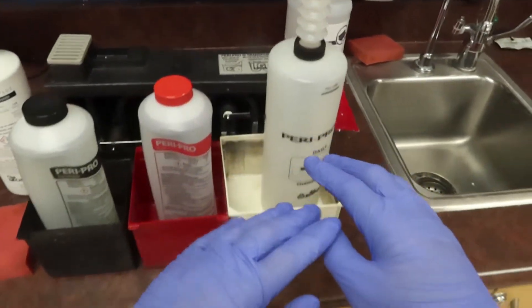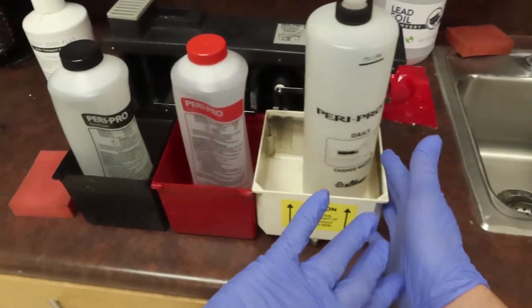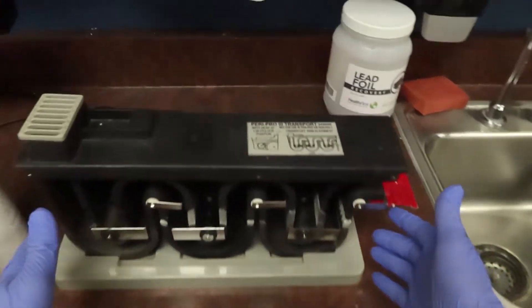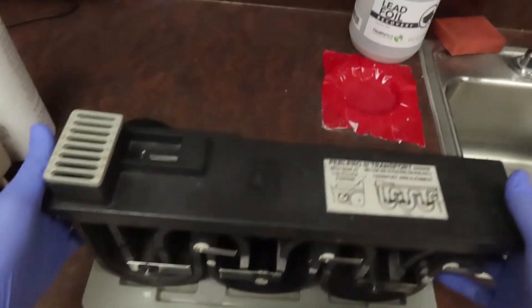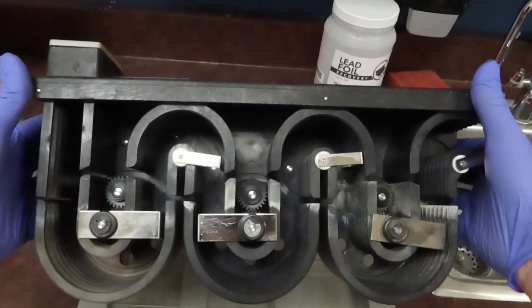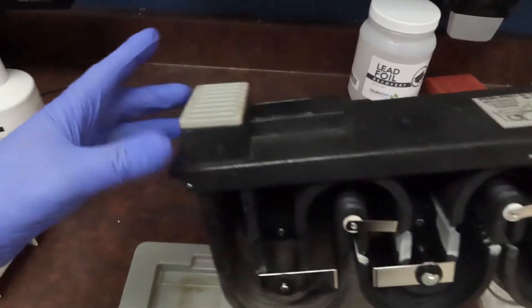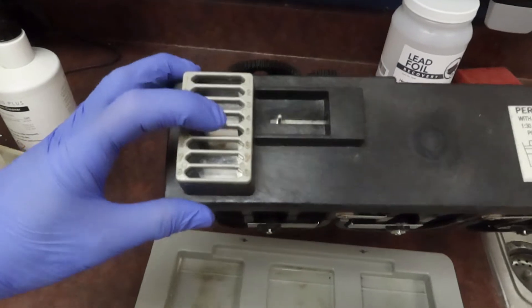If we shift those off to the side, let's go to the actual mechanics of our unit. This is going to be the main piece that is going to deliver our x-rays. When we put our films, they're going to fit into one of these eight slots.